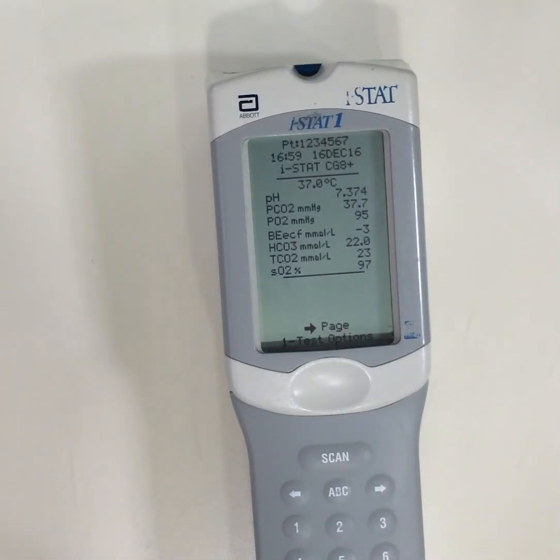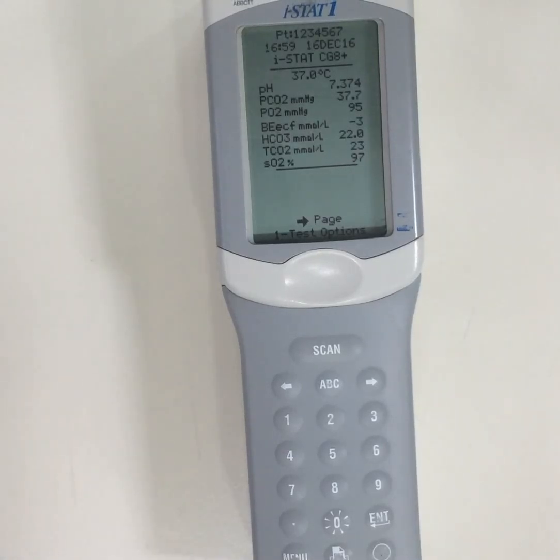The analyzer then stores this record and you will be able to retrieve it manually when required.